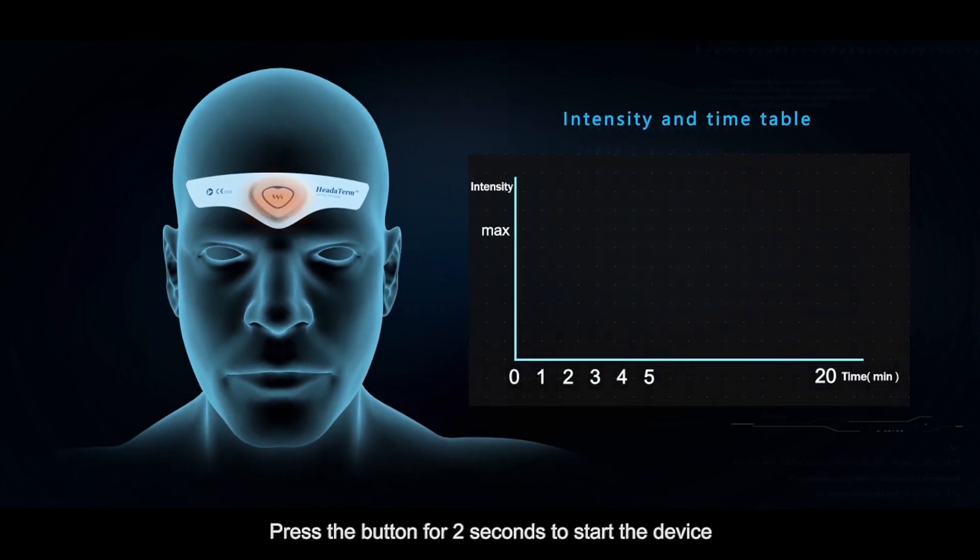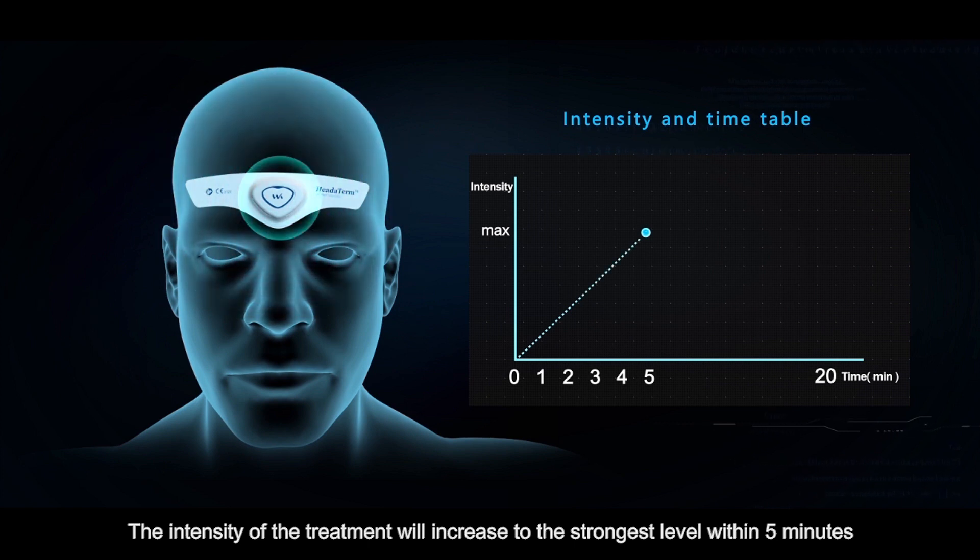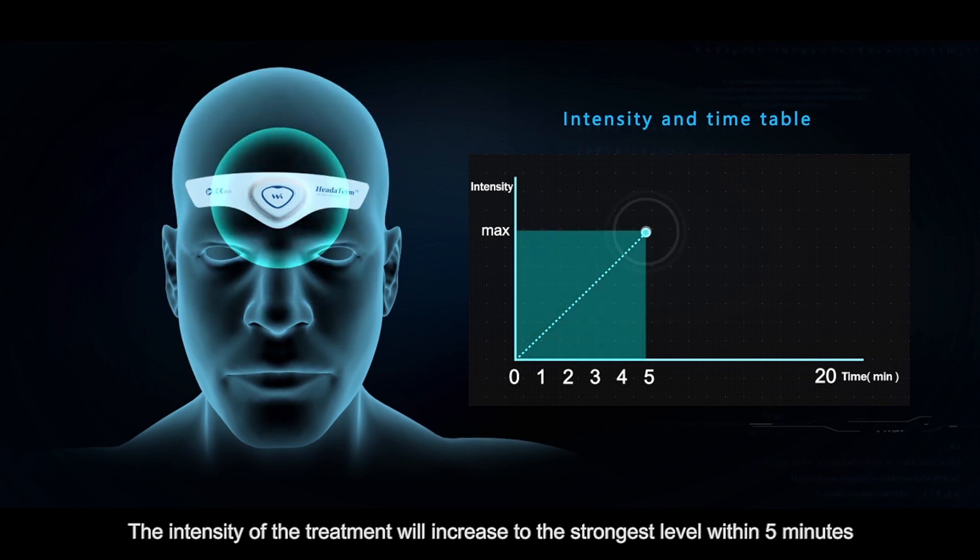Press the button for two seconds to start the device. The intensity of the treatment will increase to the strongest level within five minutes.